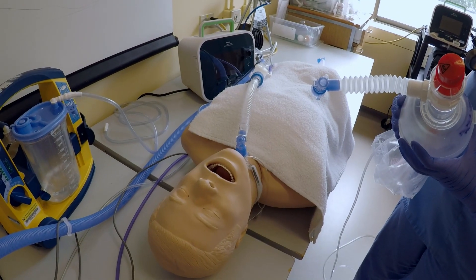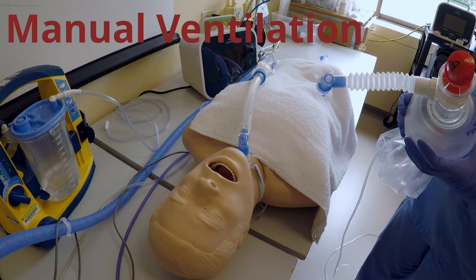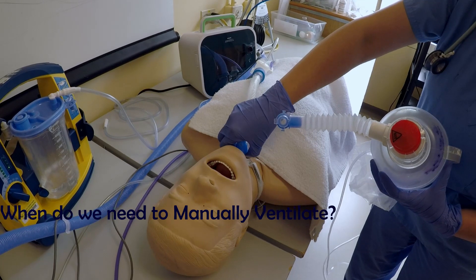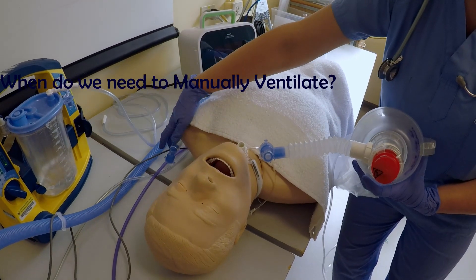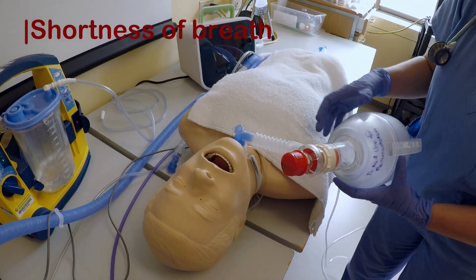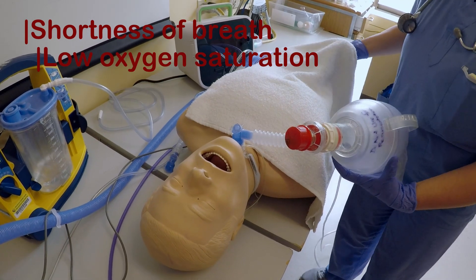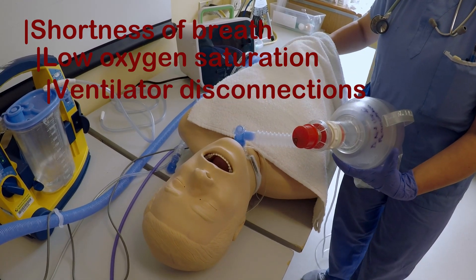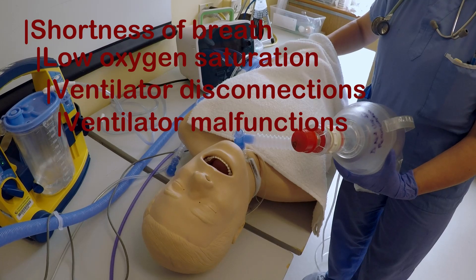Let's review manual ventilation. This is the most important skill. When do we need to manually ventilate? Anytime patients complain of shortness of breath, low oxygen saturation, ventilator disconnections, or ventilator malfunctions.